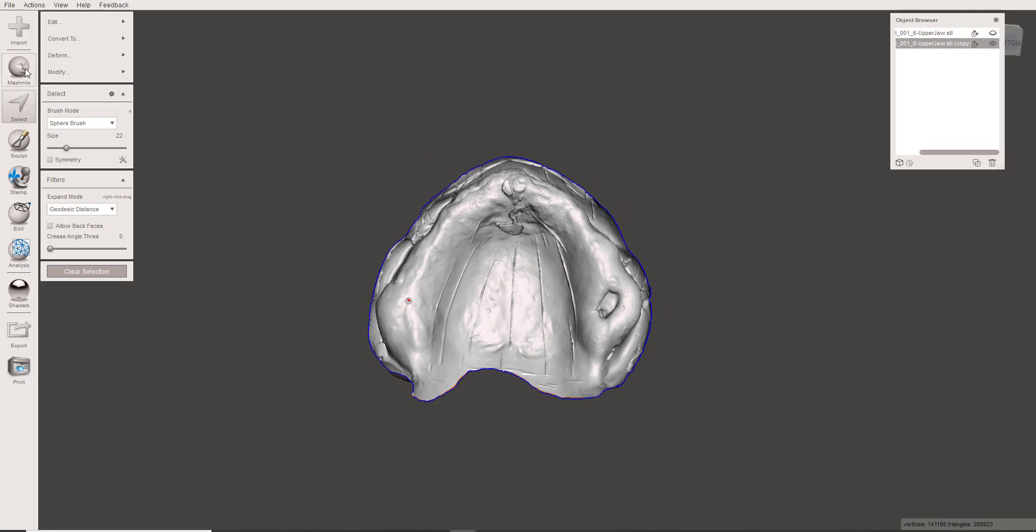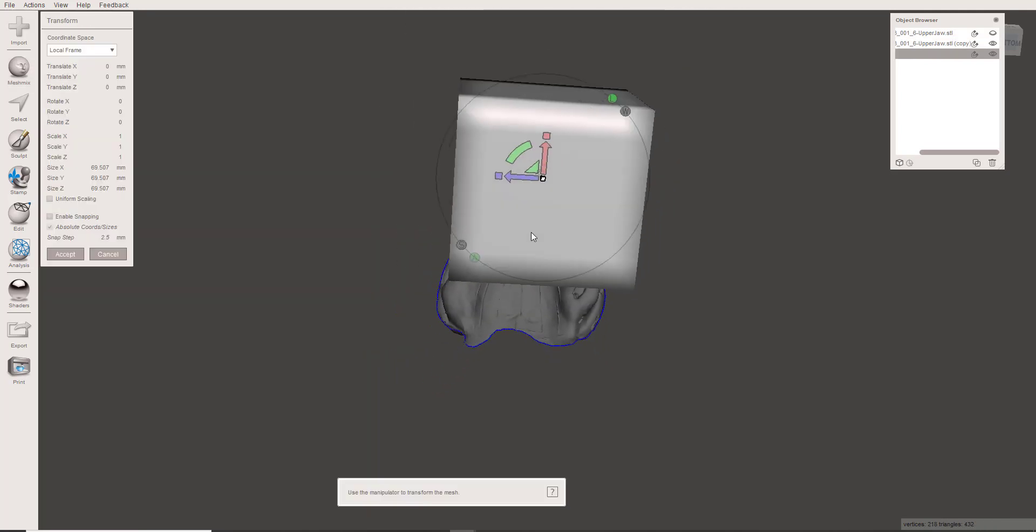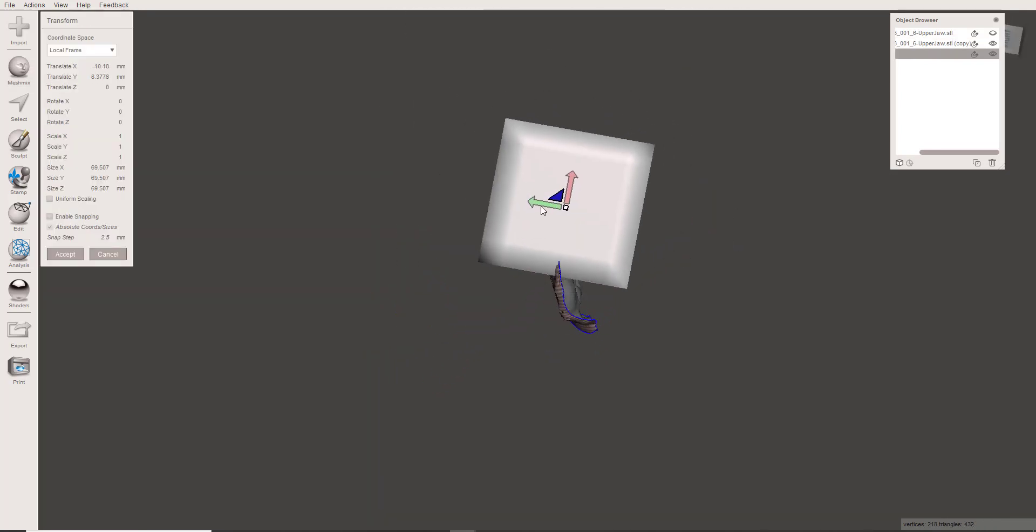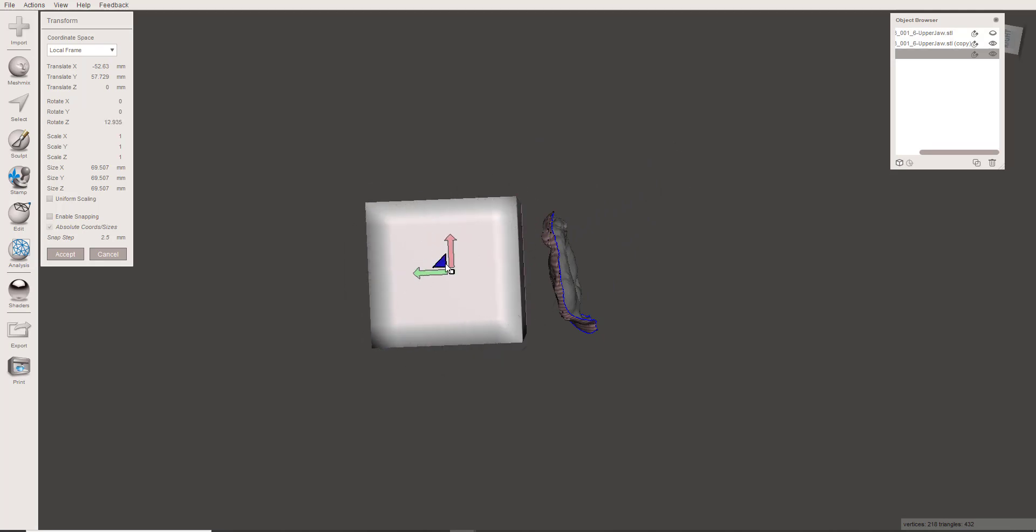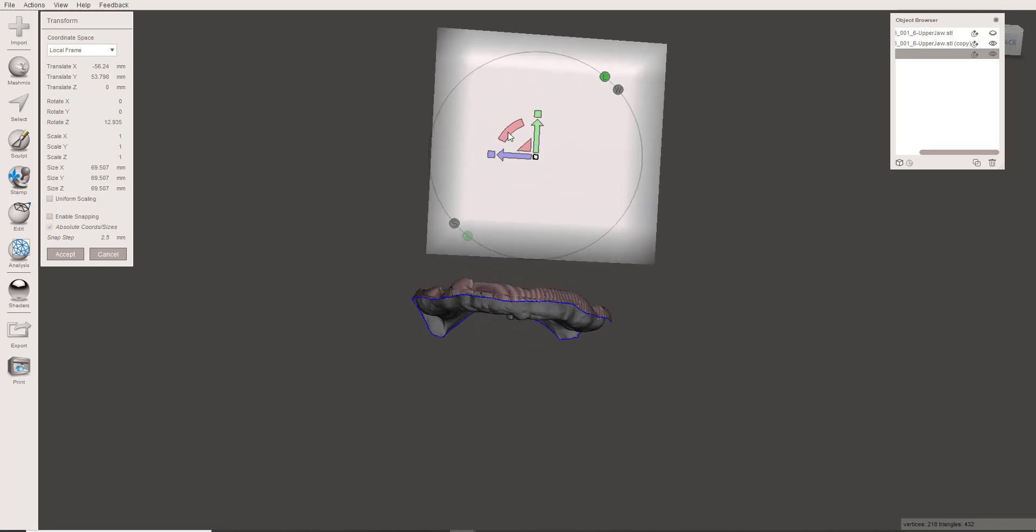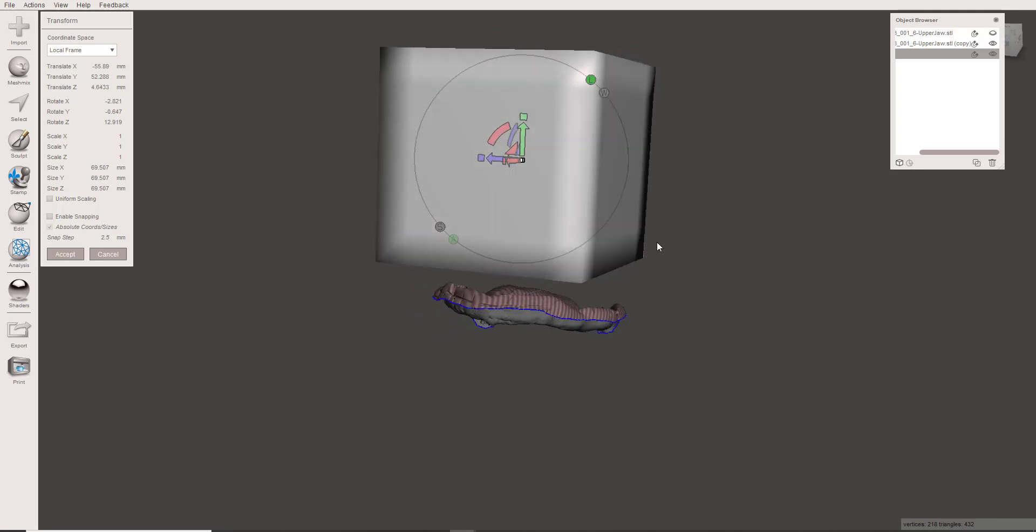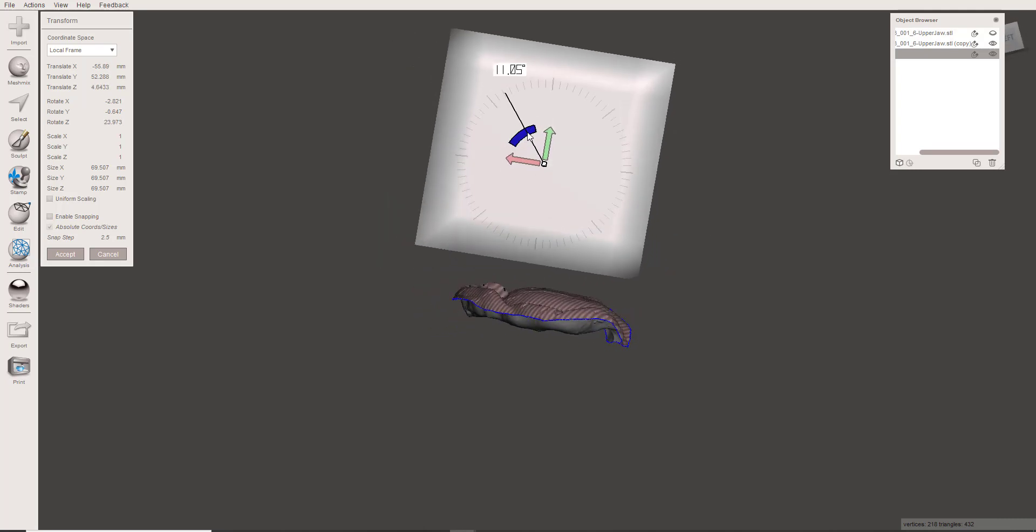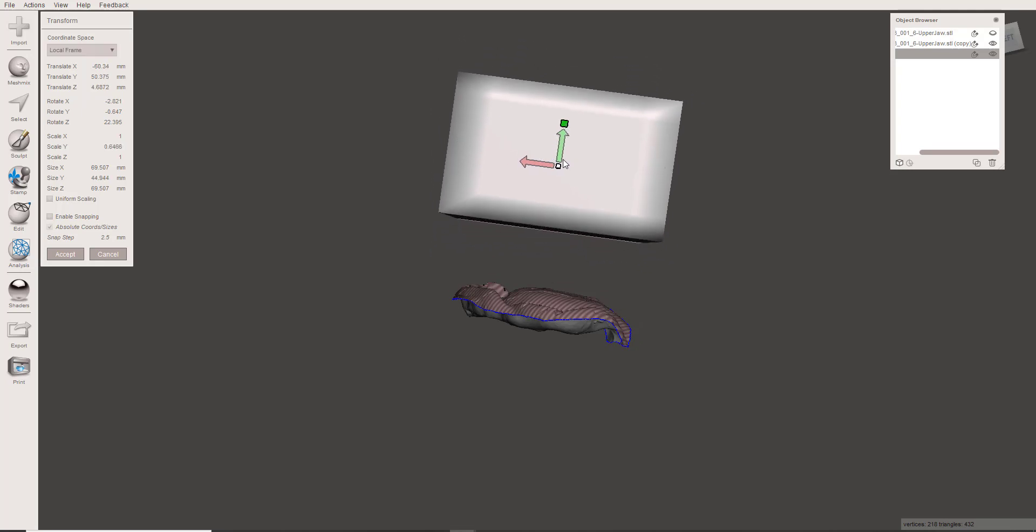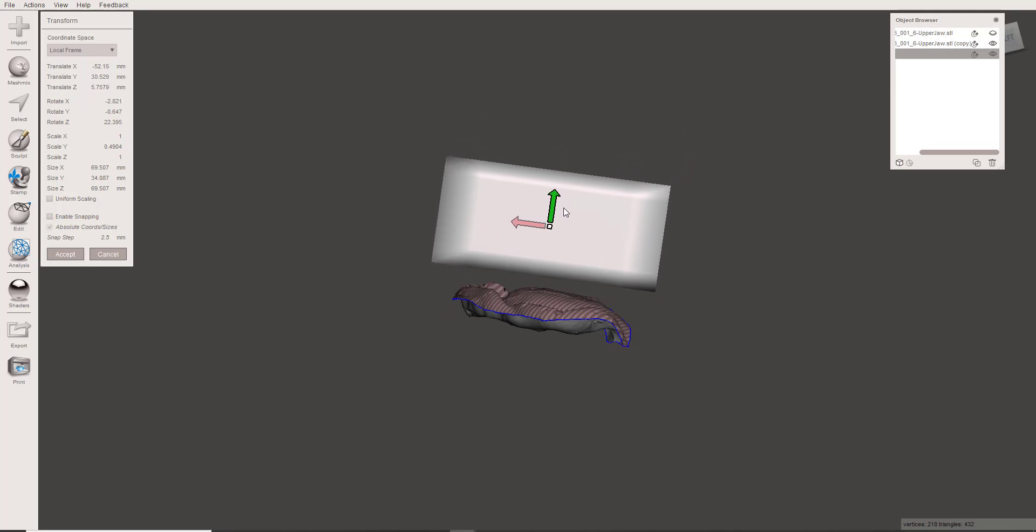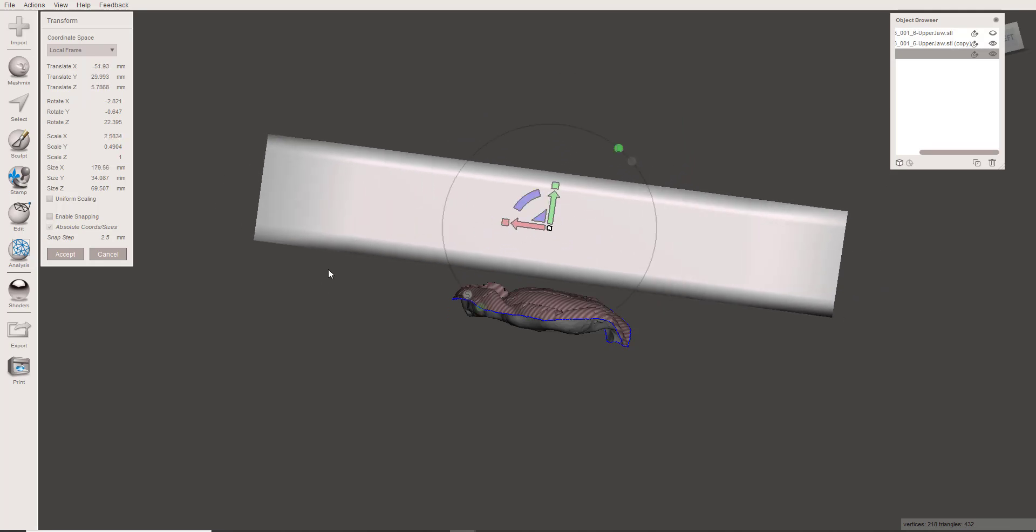What I'm going to do is just add a base to it in a different method. I'm going to come to Mesh Mix and grab just a primitive shape, and I need to put this shape over here. What I want you to think of this as is just like having your assistant pour a base and plop it down on a big patty of stone on the tabletop. Well, this is your tabletop. It doesn't need to be this tall. You could break that down a little bit, but you do want it to go well beyond the boundaries.